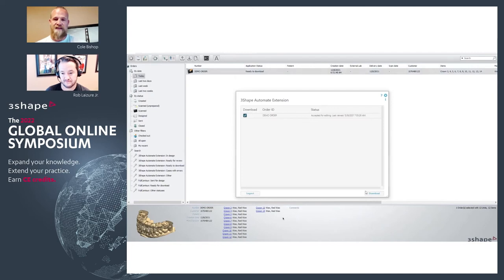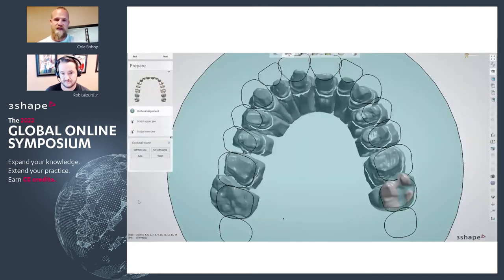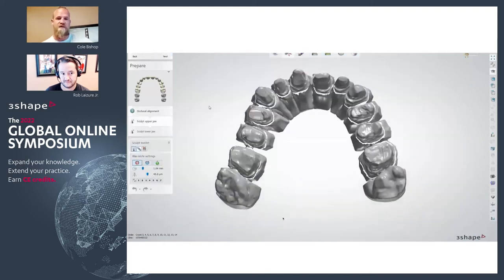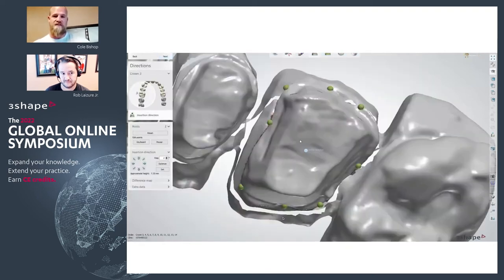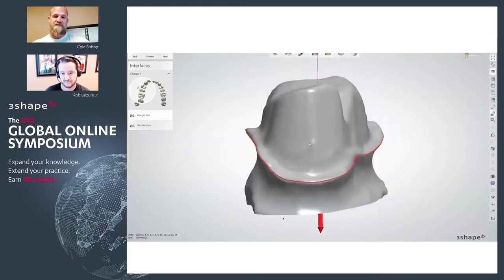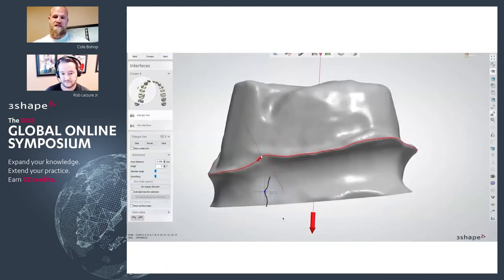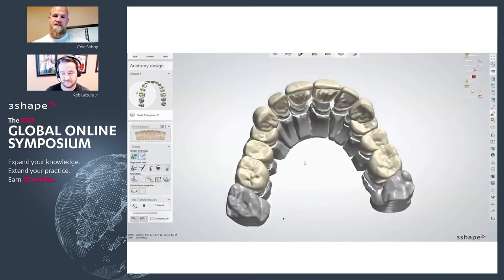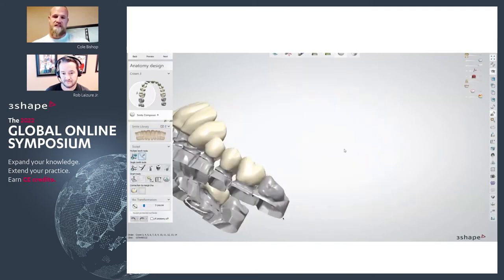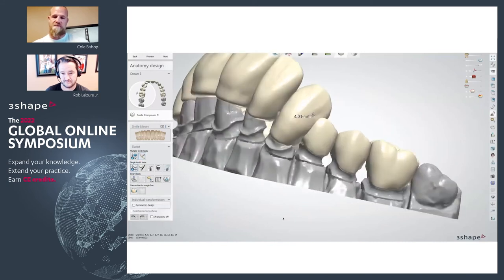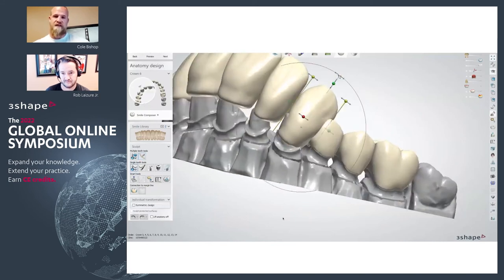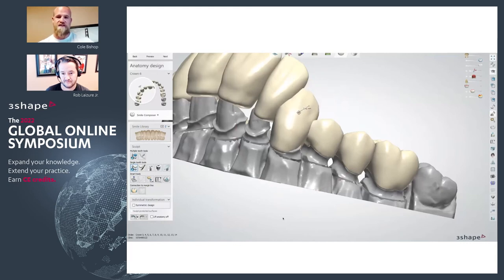You'll bring that back in. Once you hit Redesign, I recommend always choose Redesign, not Auto-Redesign — sometimes it can kind of throw things off a little bit. You will have to walk through your margin lines just to confirm everything; that's just part of the process during this redesign phase. You can see here we've got our nice maintained posterior units, and then it brought in our proposal for our anteriors.